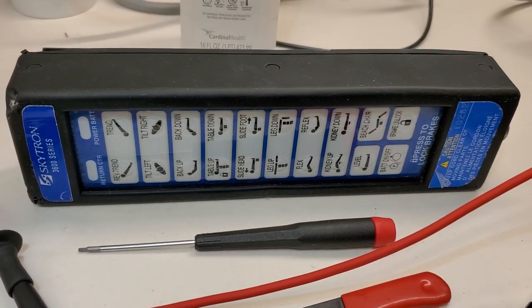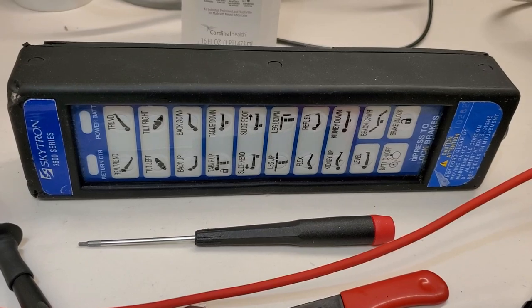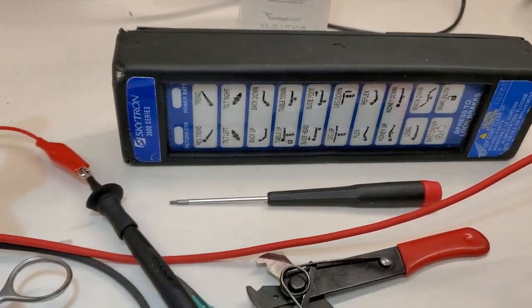Hey guys, I'm going to bring you a real quick video here. This is on Skytron 3600 series remotes and their failures.